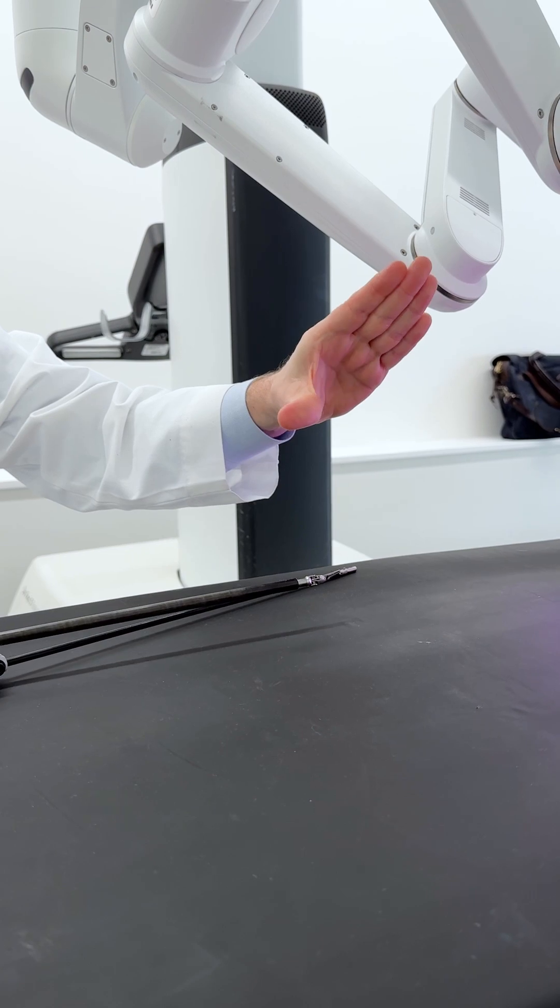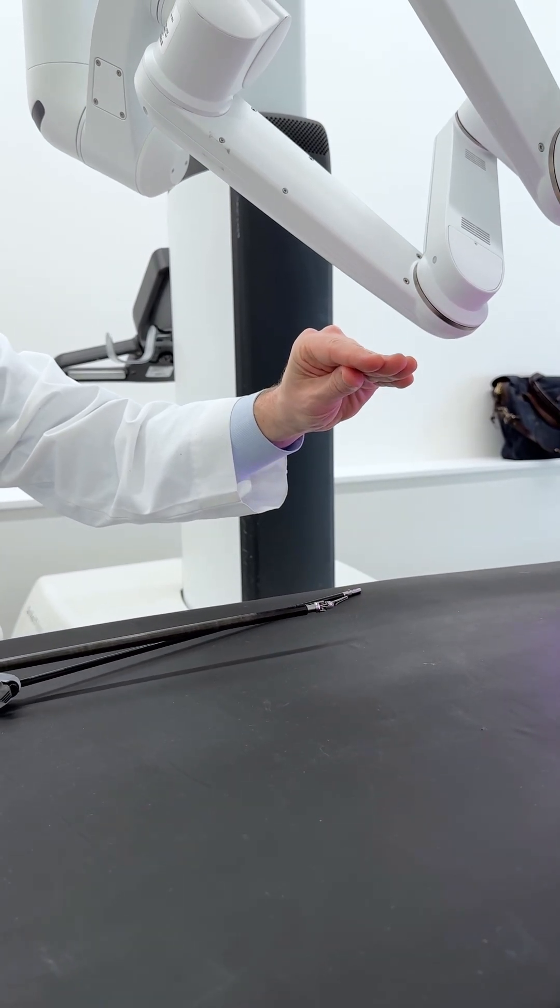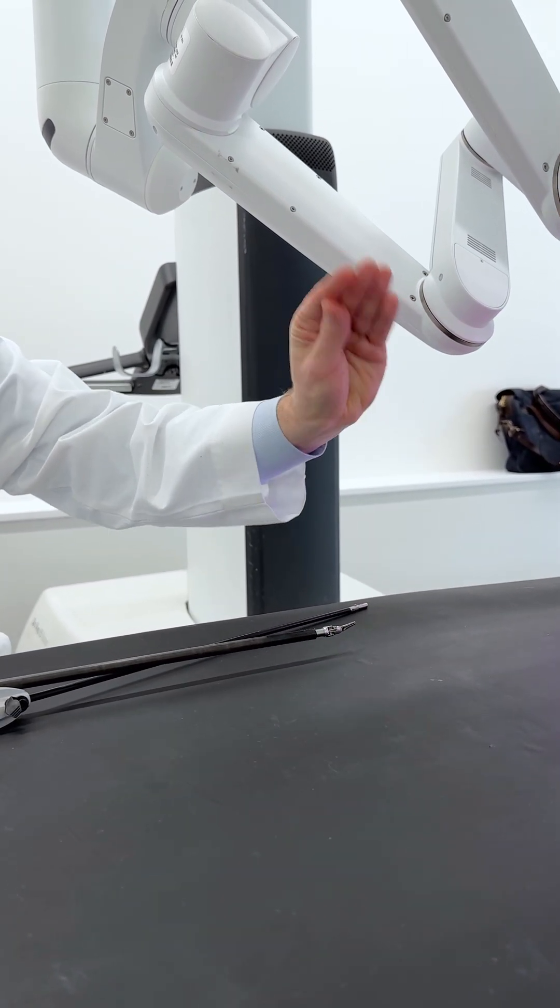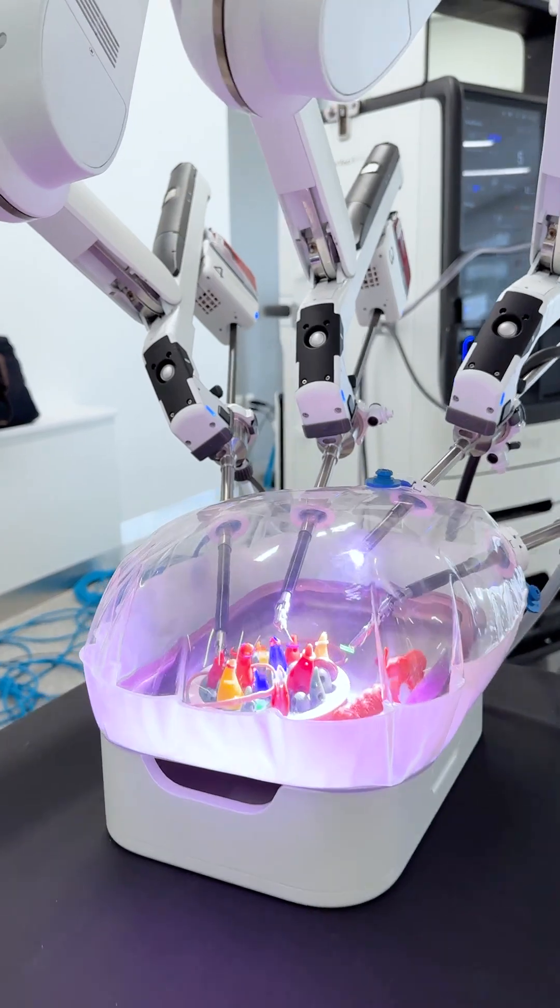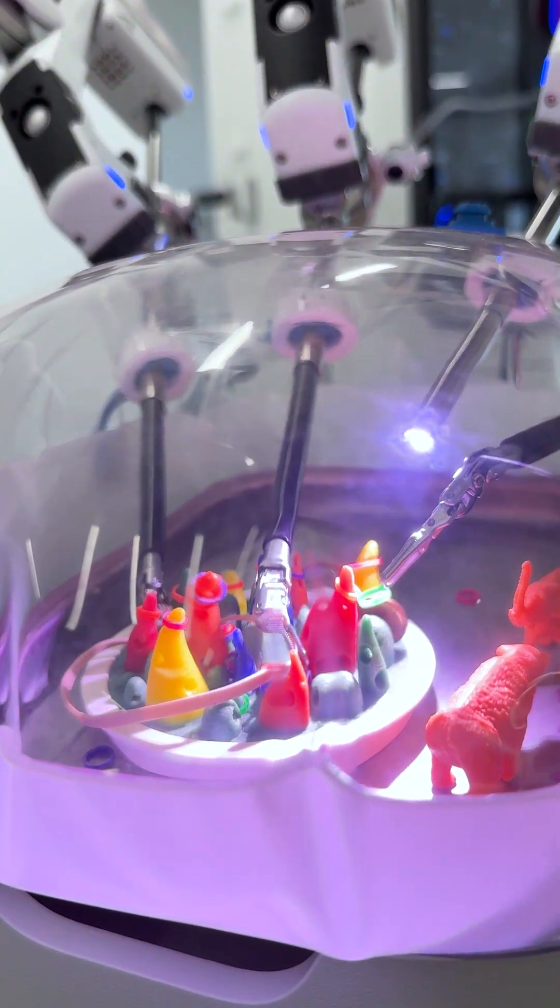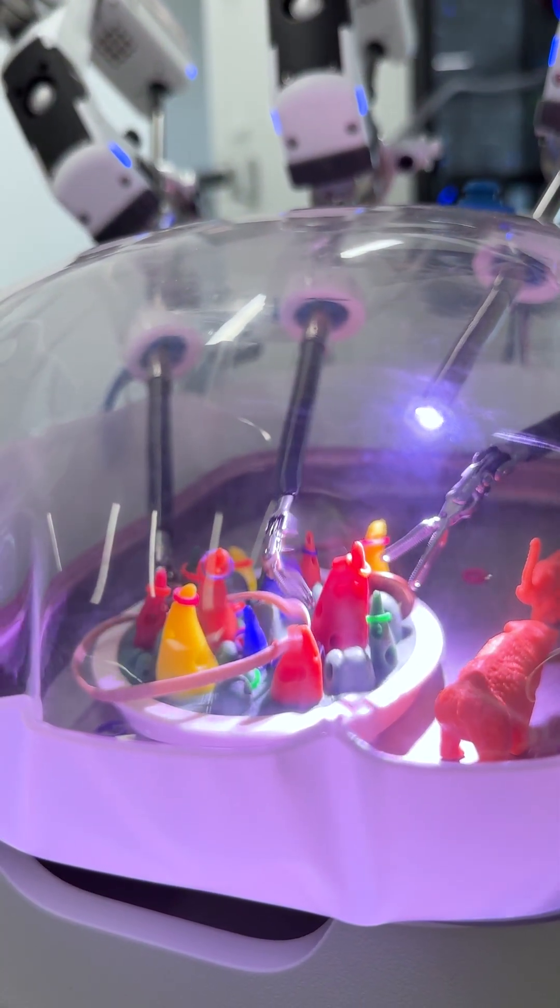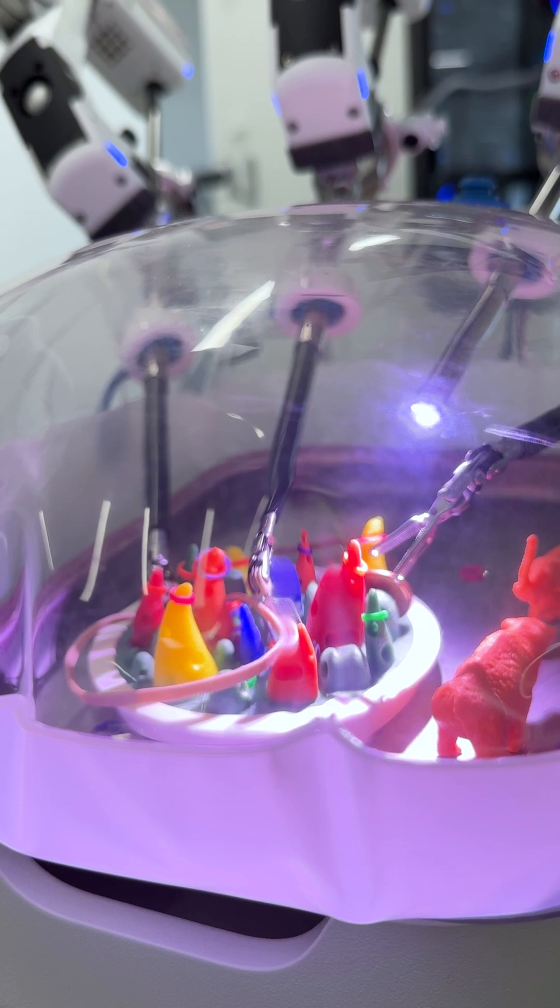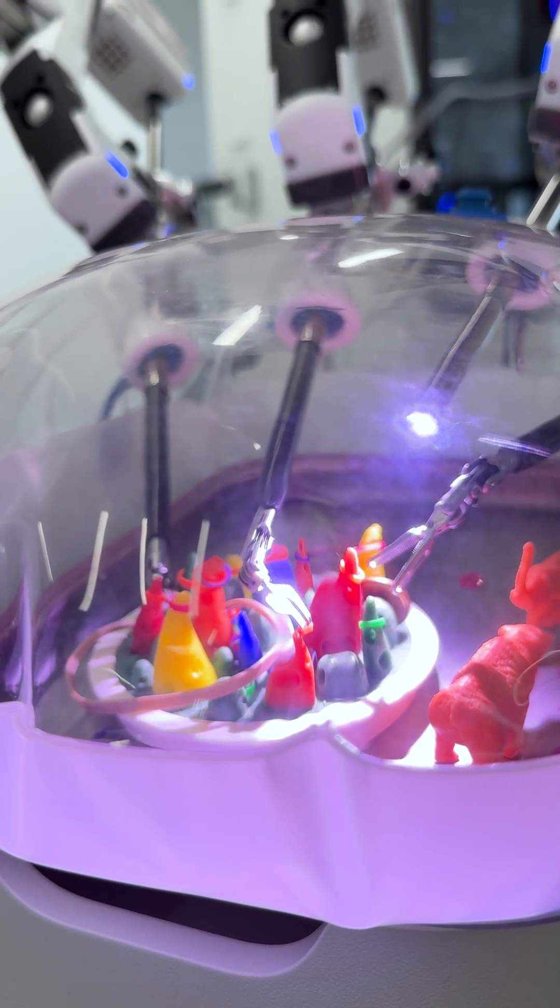Straight stick instruments for laparoscopes go like this, but with the robot we have a more wristed ability to get into tighter spaces, to do surgeries in smaller areas with smaller incisions and the ability to treat patients quicker.